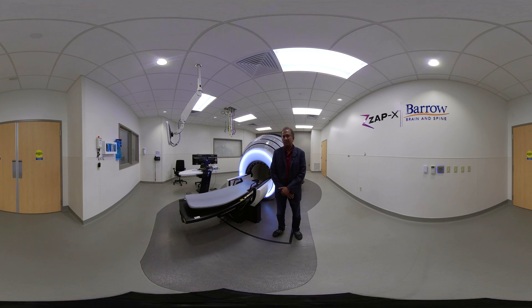Hello, my name is Mohan Bajaluri. I'm the founder, president, and CTO of ZAP Surgical Systems. I want to walk you through some of the details about our machine here, the ZAP-X radiosurgery system. Most of you have probably seen other videos on the internet, and this is a closer look at various parts of the system.